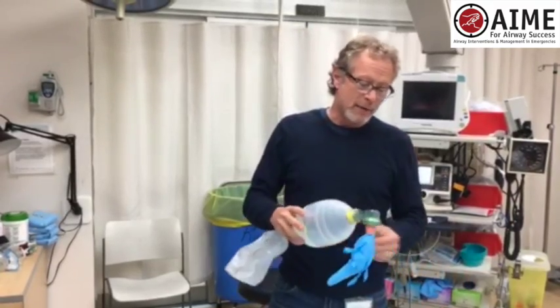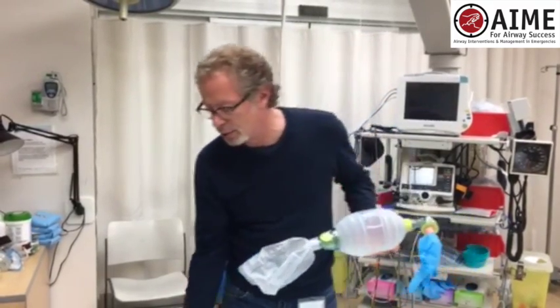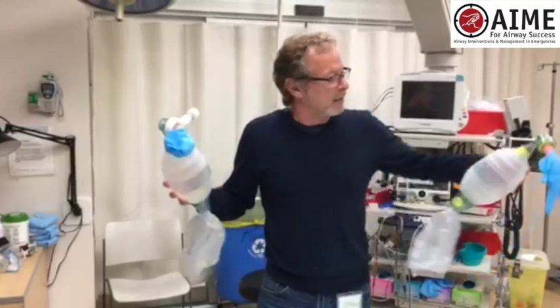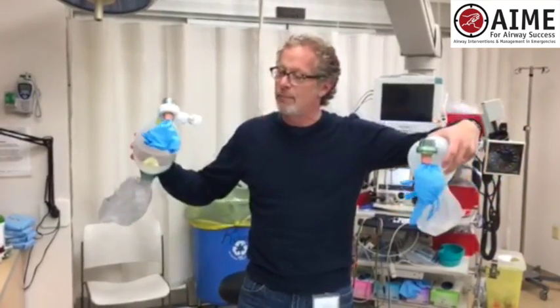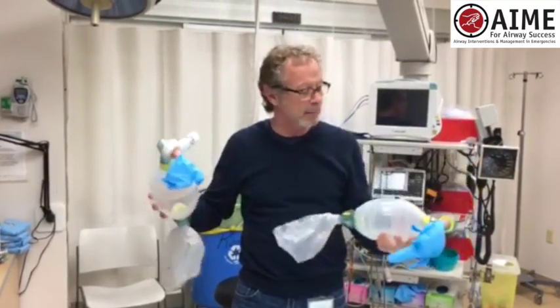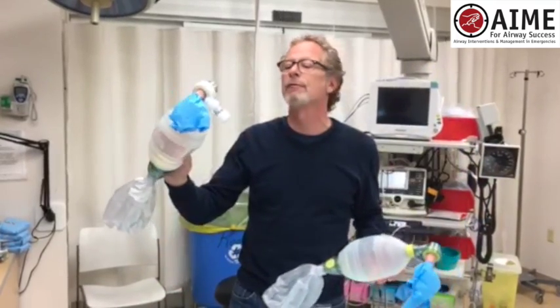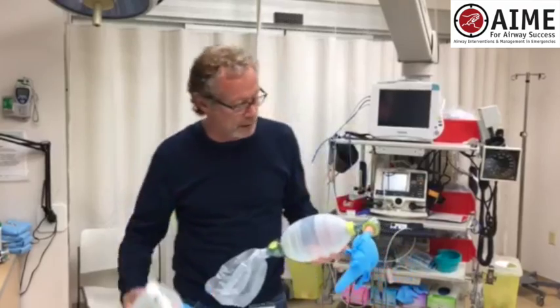But if you don't have access to these, here's a simple jury-rig demonstration. I've got two gloves taped on a BVM. This one has no PEEP valve, and this one does have a PEEP valve, dialed up somewhere between 10 and 15.